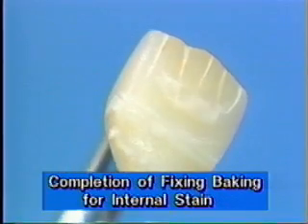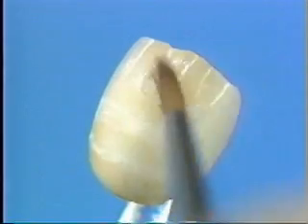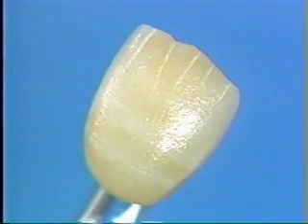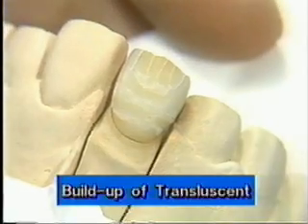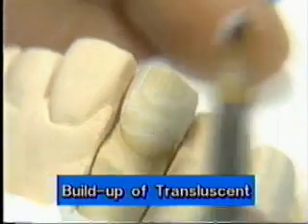The second baking of the internal live stain follows the same program as that of the first baking. After the baking, confirm the color shade by wetting the surface with internal stain liquid. Insert the metal framework in the die for the buildup of translucent porcelain.